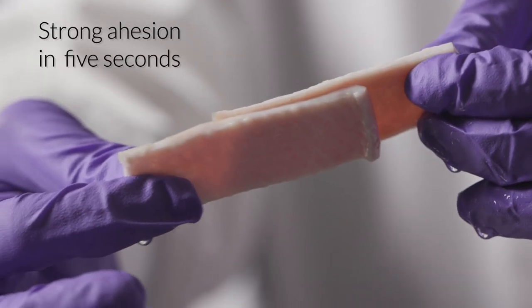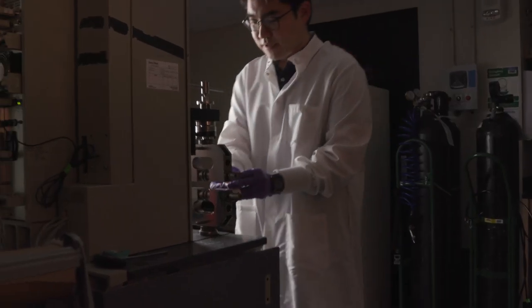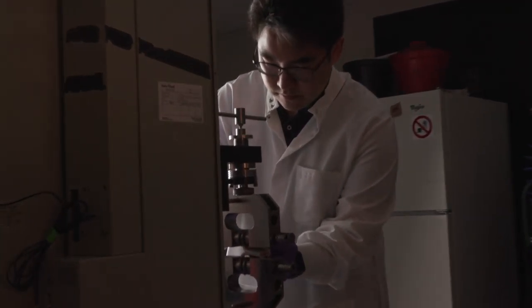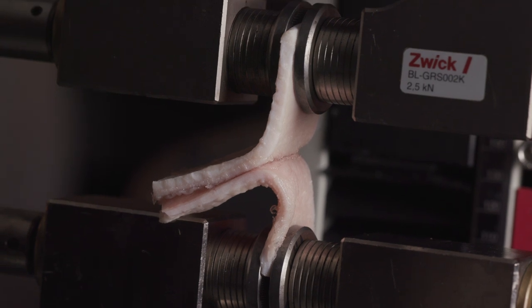Once the wound heals, the bioadhesive dissolves. We did different types of standard tests to characterize the strength and toughness of this adhesion. We found it's multiple times higher than state-of-the-art bioadhesives.